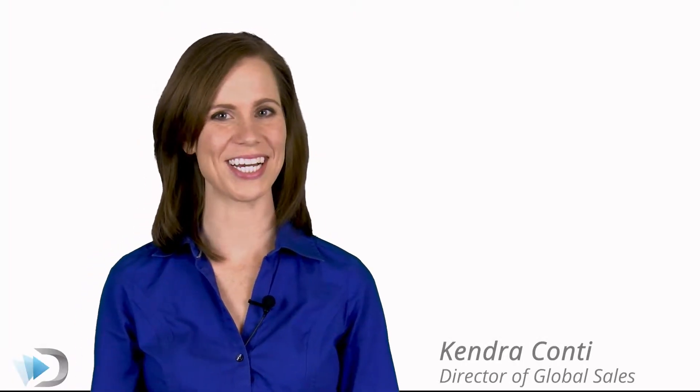Hello, I'm Kendra from Dynatek Labs, and today I'll be demonstrating a standard test performed on our patented acute particulate tester.